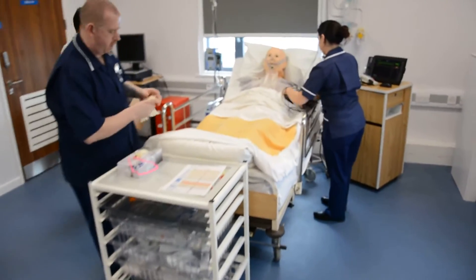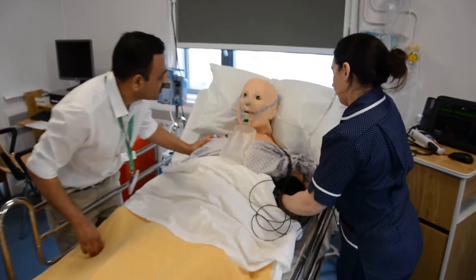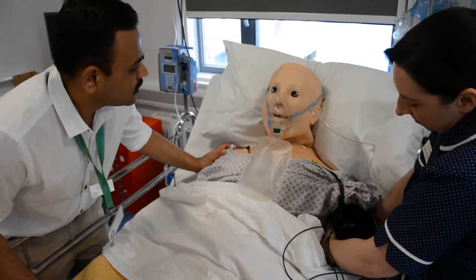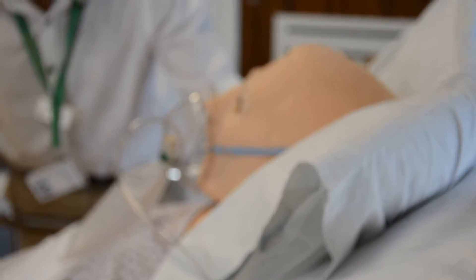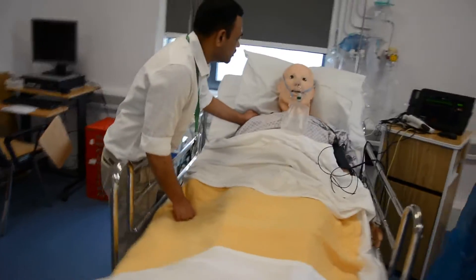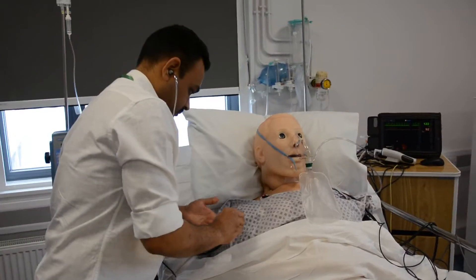We can also set up scenarios where we get teams to work together, and that's really important because quite often we know that is where communication breaks down. If we've got a patient that's unwell and we've got lots of different teams from different specialties or disciplines, we can get them to work together and see how we can function better as a team. All those things really impact on patient safety.